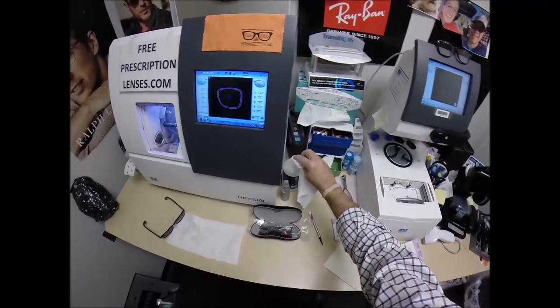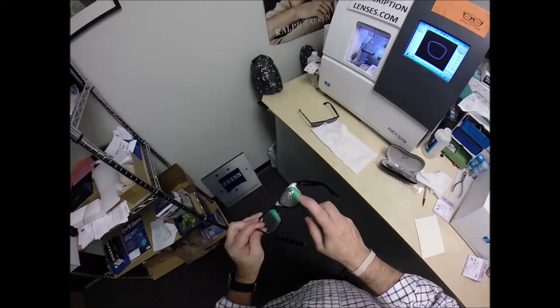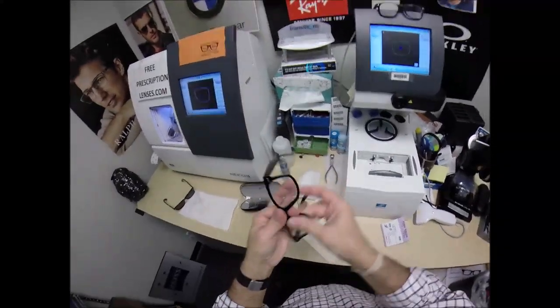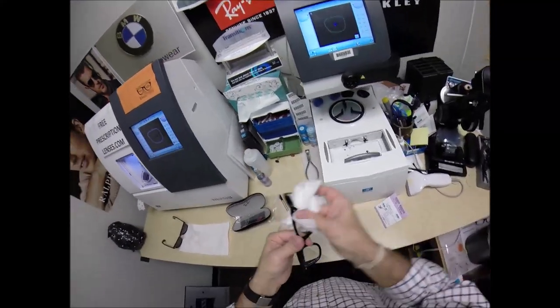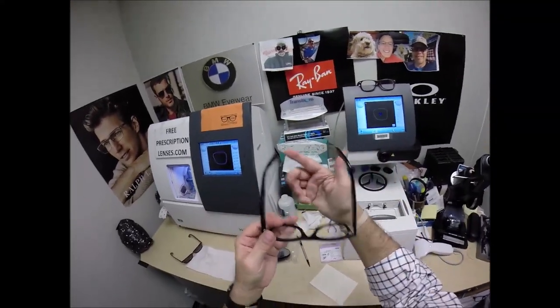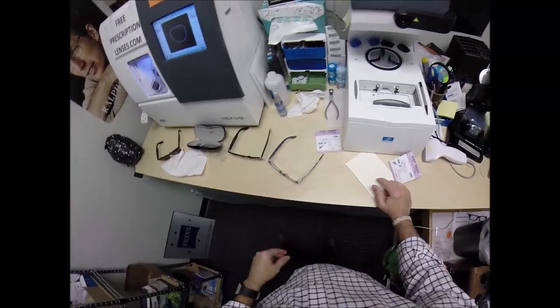This is the portion in every video where, as I clean your lenses, I mention that when you get these in the mail, there is a small chance they could fit too loose or too tight. However, there's an 80% chance that one side is going to sit higher than the other — that's because 80% of people have one ear that is higher than the other. Because of that statistic, 99% of all optical shops will do free adjustments if you ask them. I'm going to get these in standard alignment first — also known as the three-point stance: points one, two, and the bottom of the frame being three. I set them down on the counter and press down — there is no wobble.